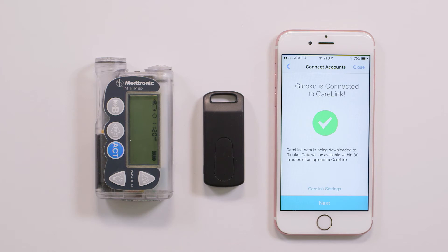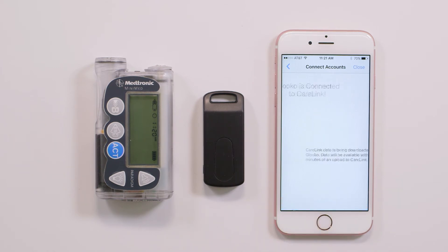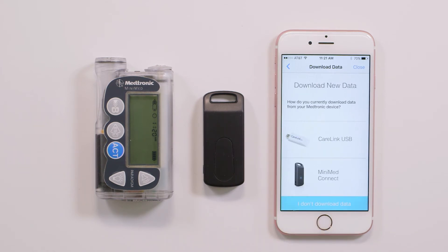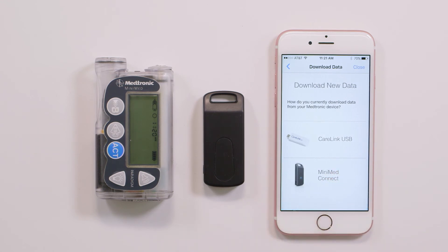Tap Next. You will now be taken to the download new data screen. Tap MiniMed Connect.